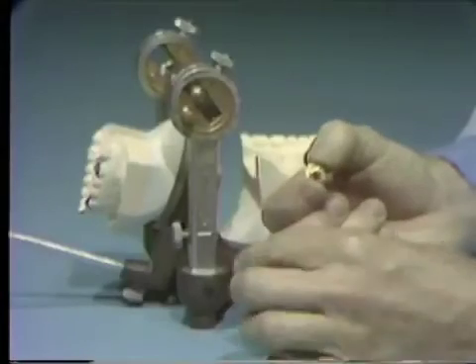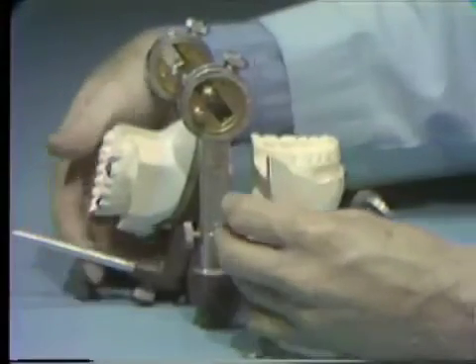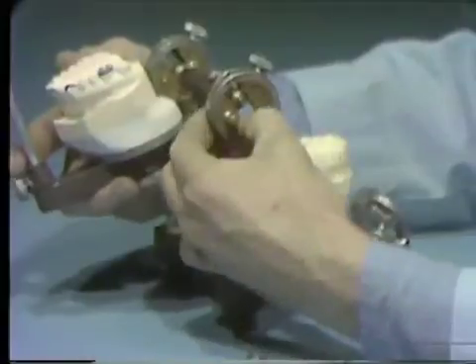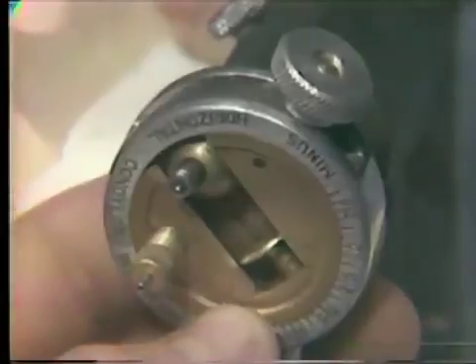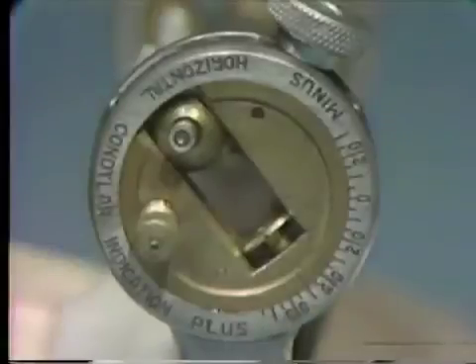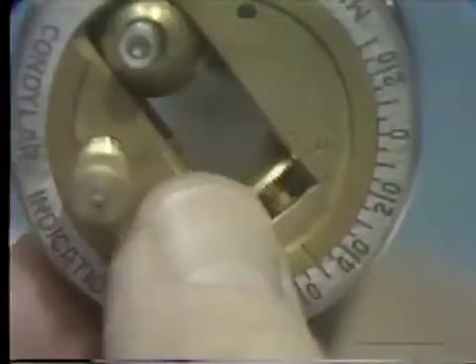Remove the spacer from the thumbscrew and be careful not to lose it. It is a good idea to tie the spacer to the condylar post. Replace the centric stop thumbscrew and return to the zero position on the PR scale, then continue one full turn, which will position the centric stop one millimeter forward.